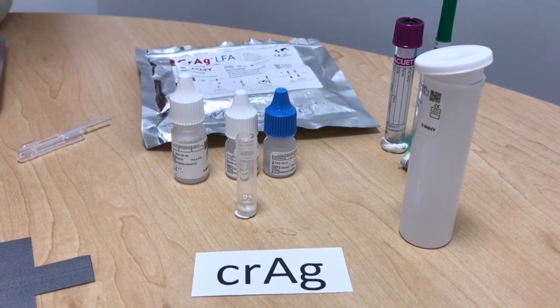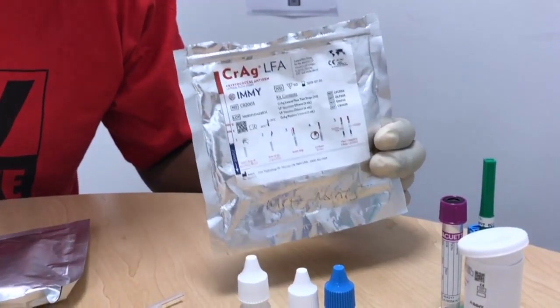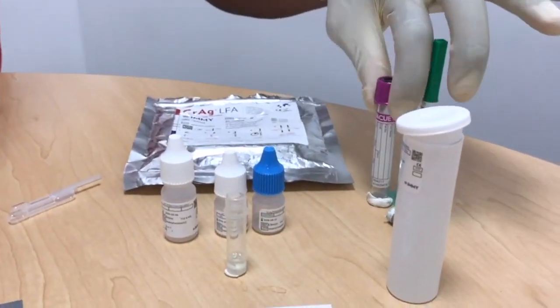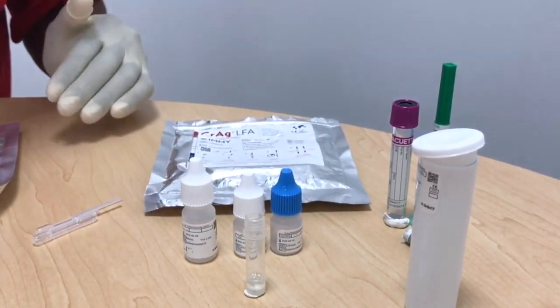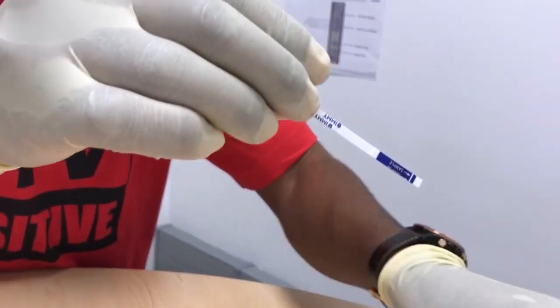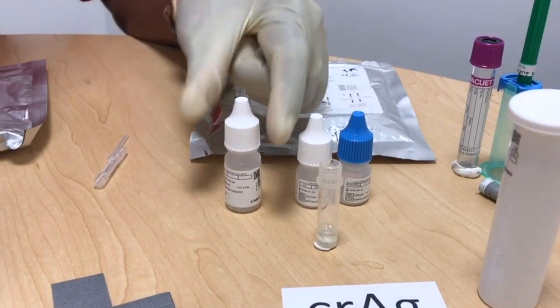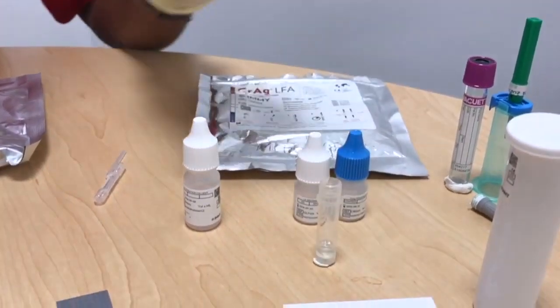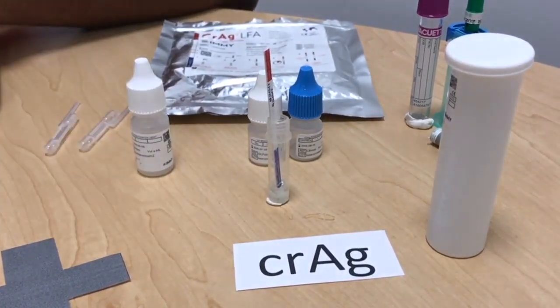Now that we've done our TB LAM test in urine, we'll move over to do the other test concurrently, called the CrAg. The CrAg is a simple test that detects the cryptococcal cell wall in blood or CSF samples. You collect the patient's blood in an EDTA tube and use the plasma — the liquid part after the cells sediment. The kit comes with test strips, and also a positive and negative control together with the diluent. To do the test, you put a drop of the diluent into a reaction tube, add a drop of the patient's plasma, mix, then put the CrAg test strip in and let it incubate for 10 minutes.